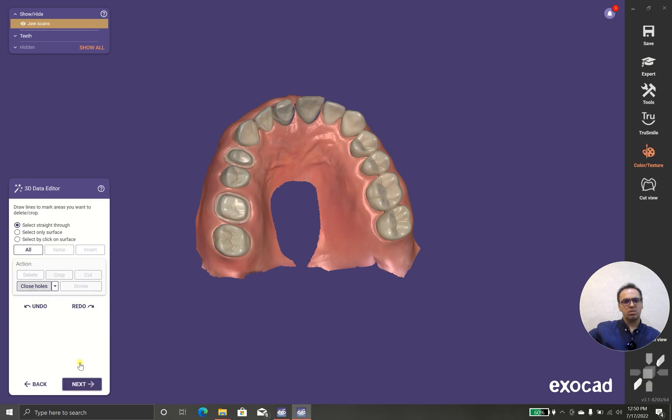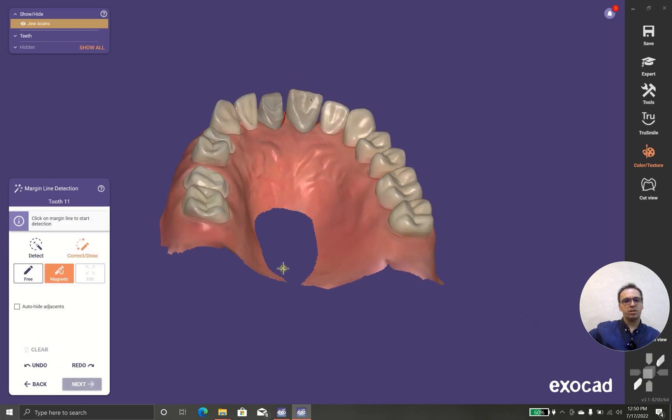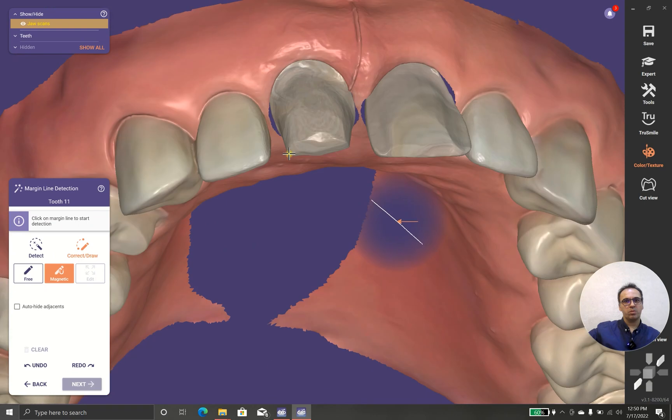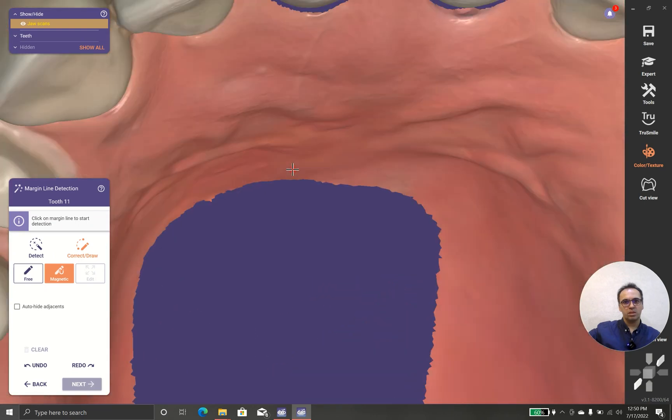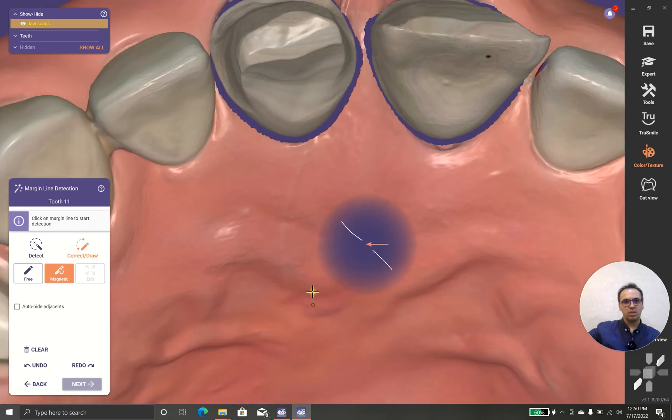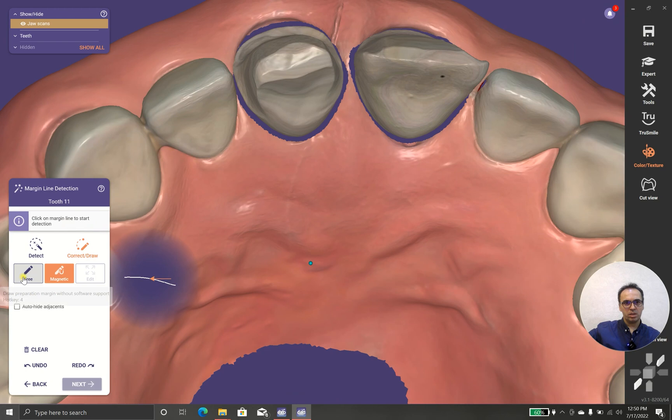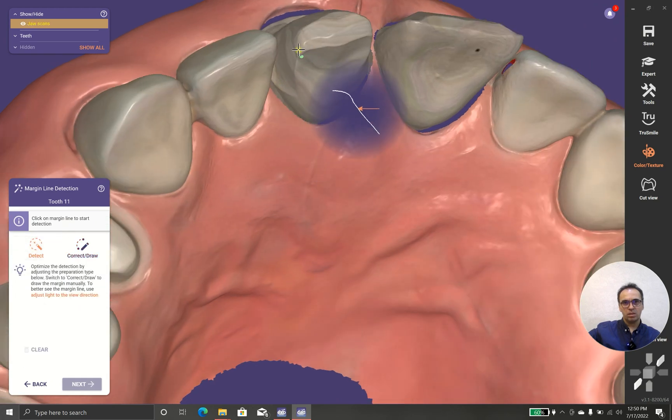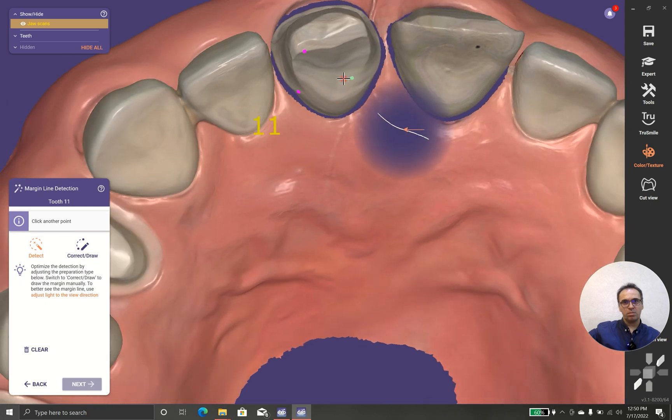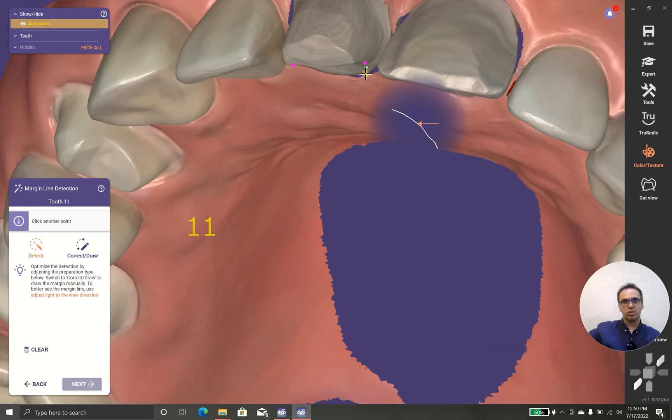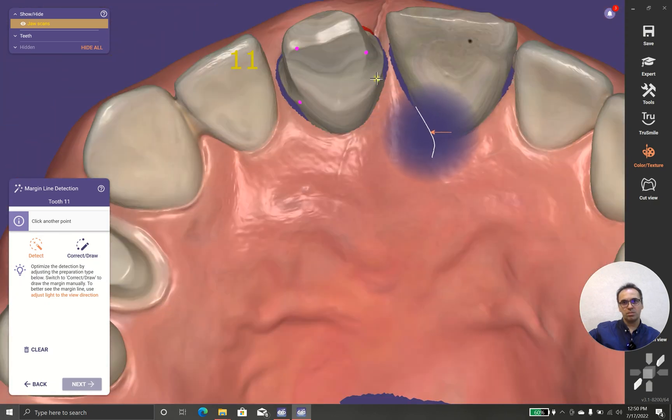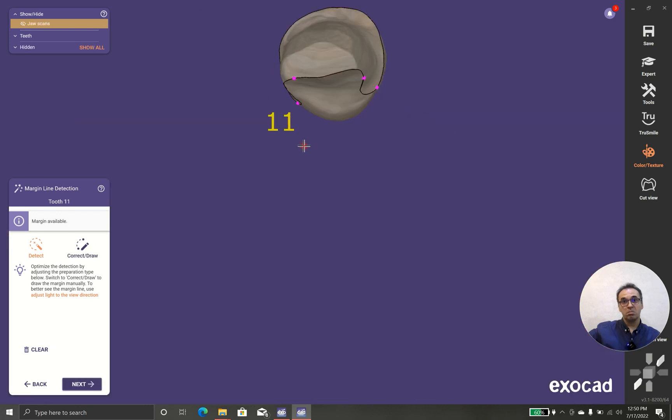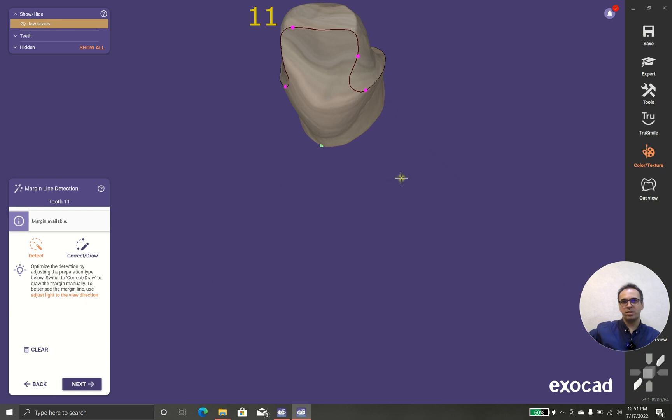Close the holes? No, don't do that. Sometimes close the holes ruins everything. So it's 1.1, let's see whether it could detect or not. I don't think it could detect it, but let's try it. Oh my gosh, it works pretty well, I'm impressed.